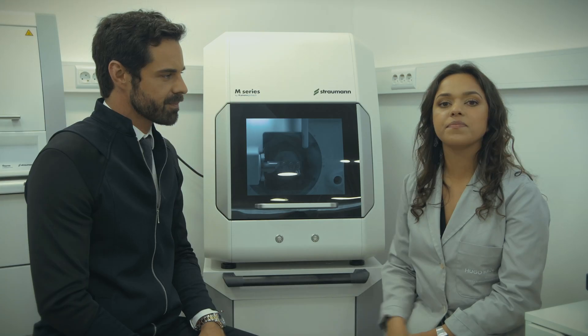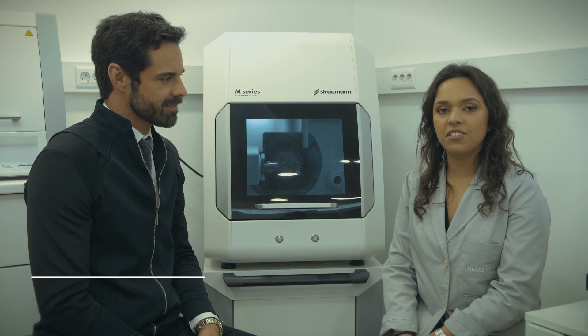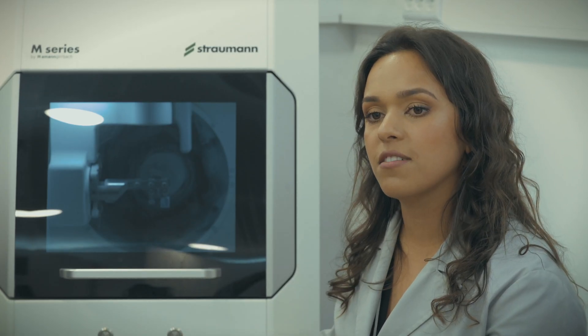If we choose zirconia or cobalt chromium, after milling the restoration, it goes to the furnace for fully automated sintering. At the end, the required finishes are made, such as polishing, colored pigments or anatomy. As you can see, it is simple and the system can handle the majority of our work. The milling machine is a digital dental technician. And now I will show you how the milling machine works.